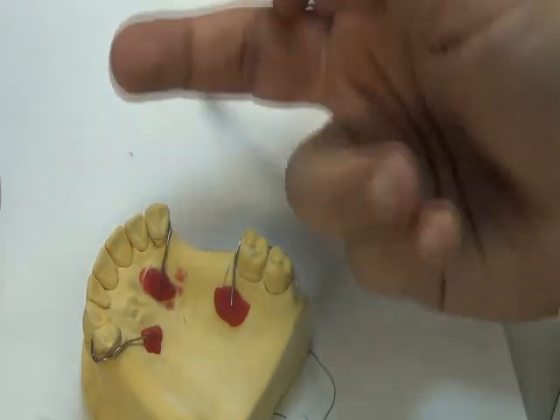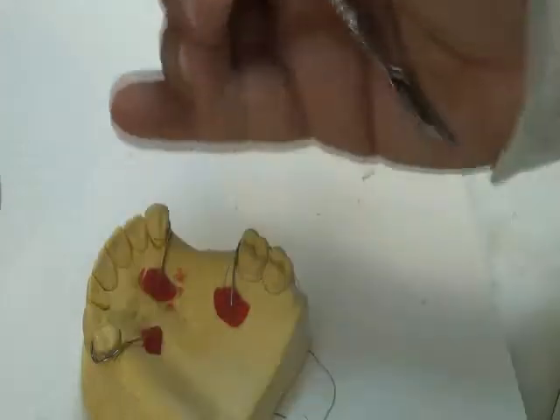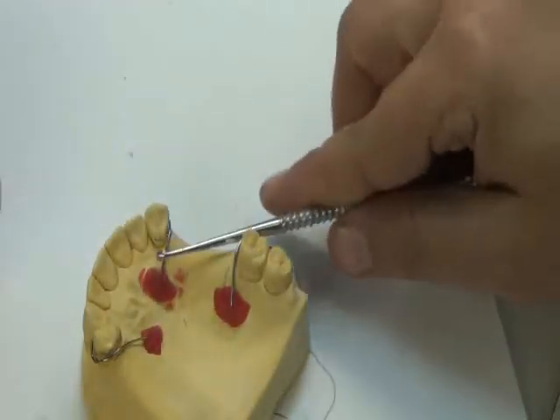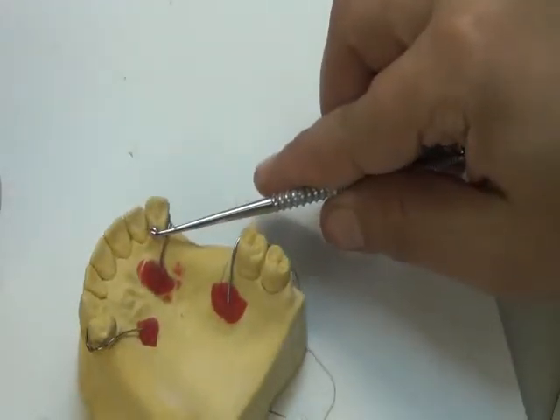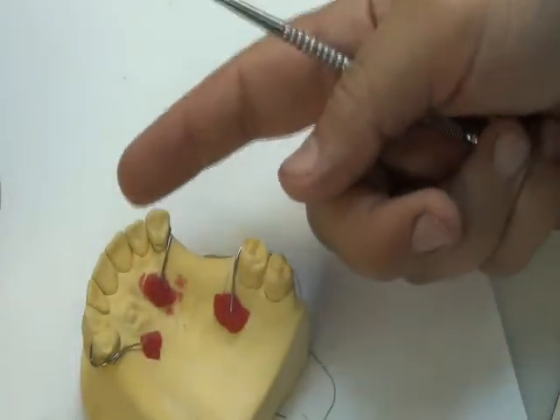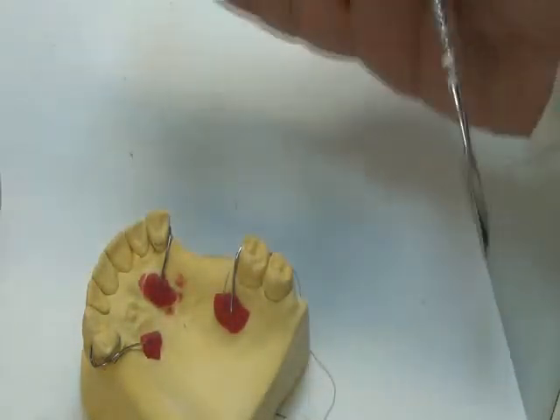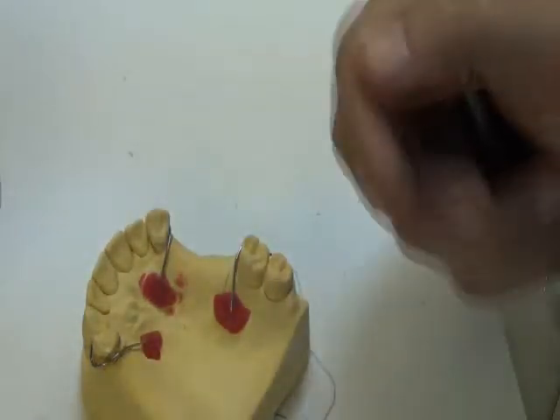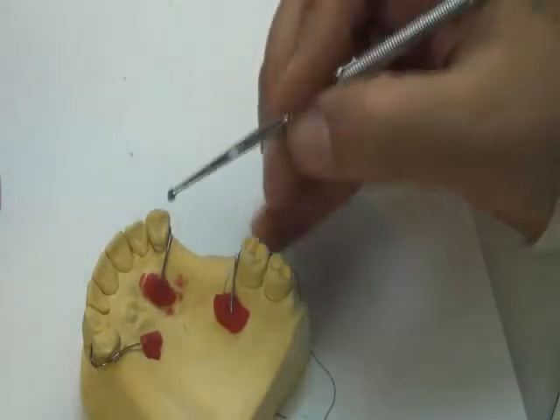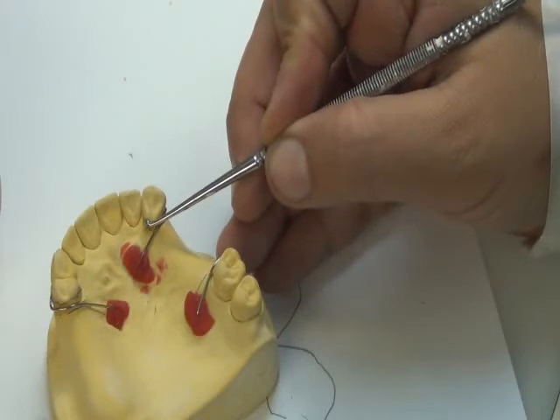Why? Because that clasp, while going in and out, is active. It's pushing the tooth. So I need something solid to back up the tooth, or otherwise, when the patient continues to use this clasp, this continuous push from the clasp will act as if it's an orthodontic device. It will move the tooth slowly. So the tooth could easily move. So I need something to oppose this movement. It's something solid, so we make it out of acryl here.